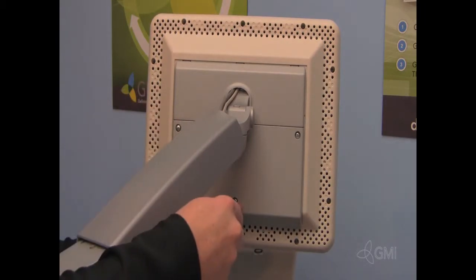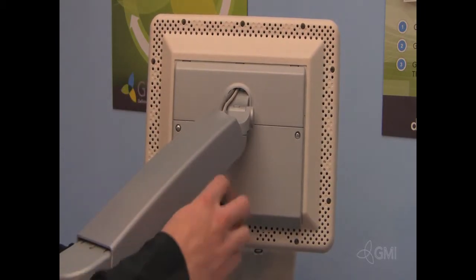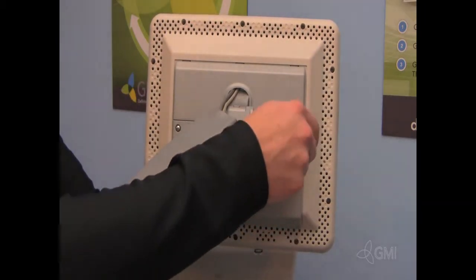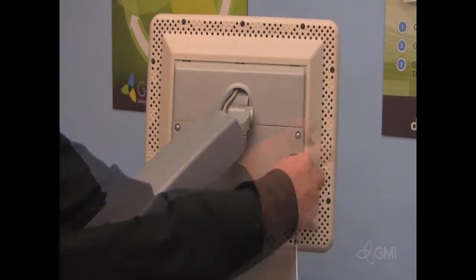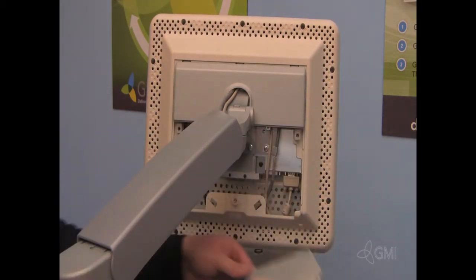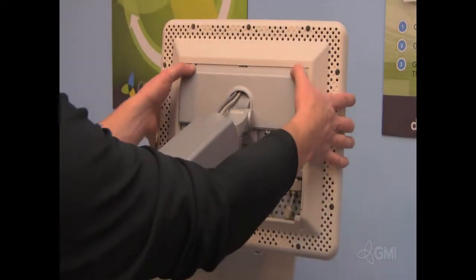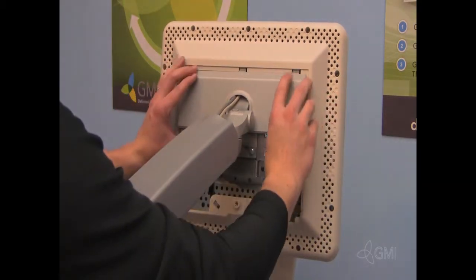Remove the three screws from the monitor panel. Press in and pull down with both thumbs to remove the upper panel.